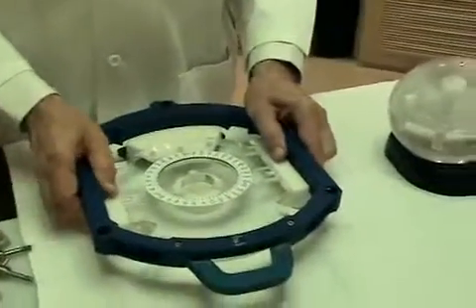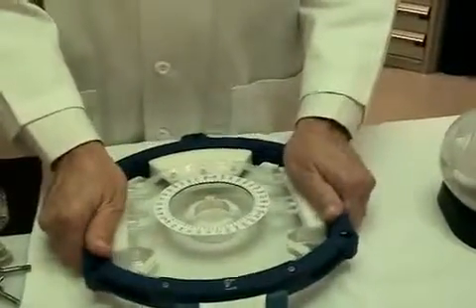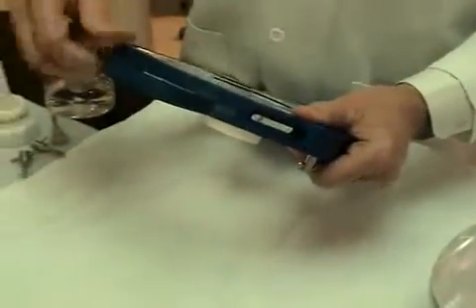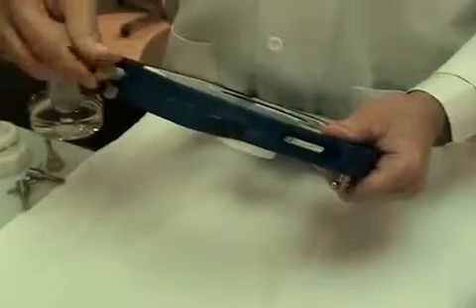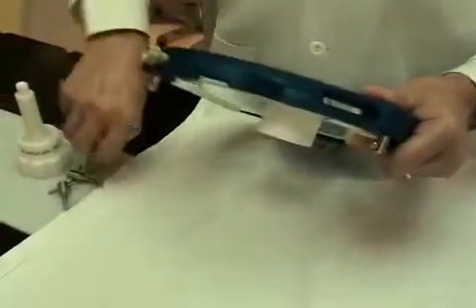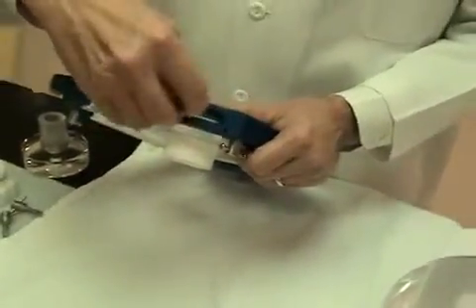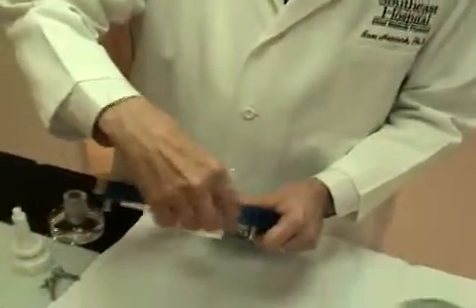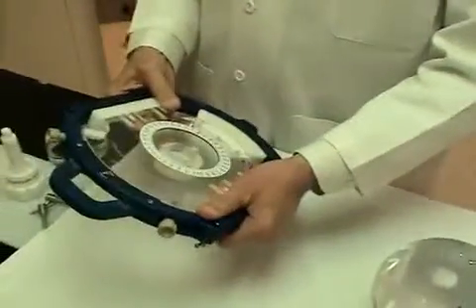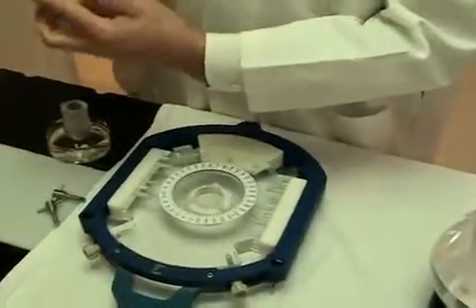This particular interface slips on the BrainLab head frame like this, and it clicks into place. It gets held in place at the top with these two provided screws. Then you have the BrainLab clamp and spacer.